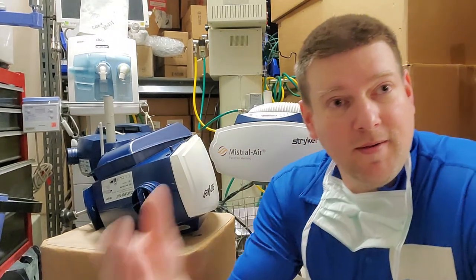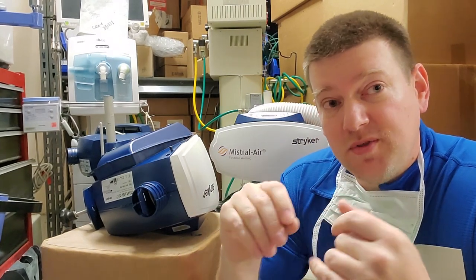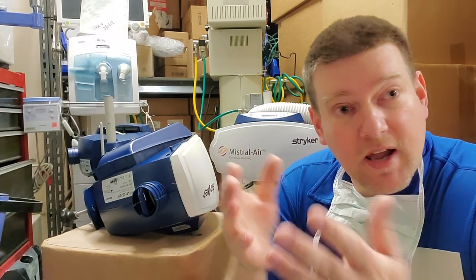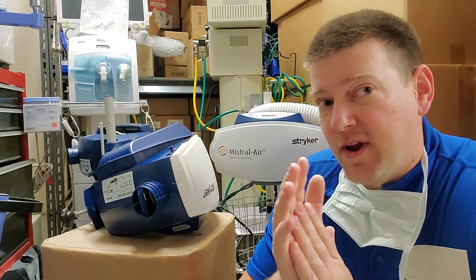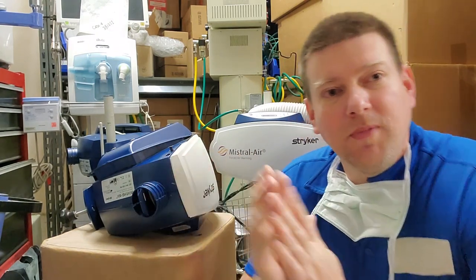This device is used to maintain body temperature, often for individuals that are incapacitated or have low body mass like pediatrics, but we also use them for patients in ICUs. If they're not very mobile, they're not generating very much body heat and we have to help them.